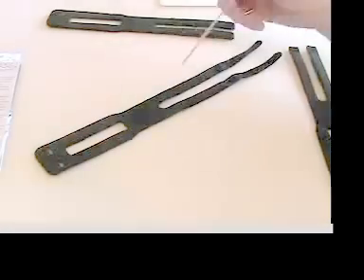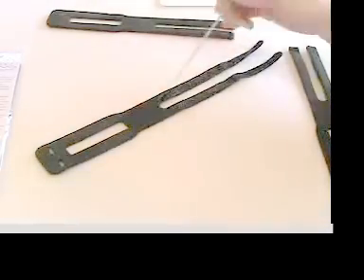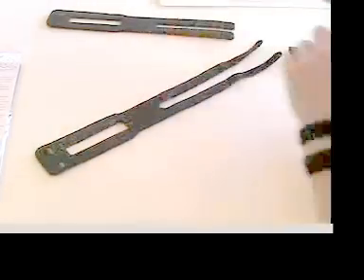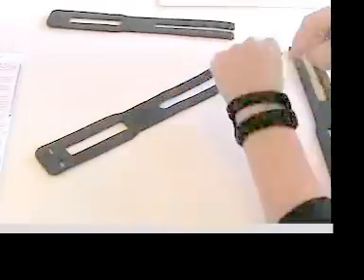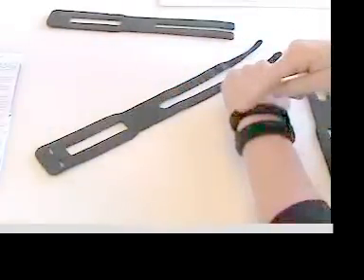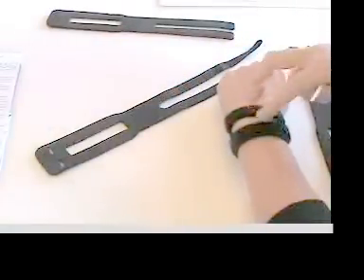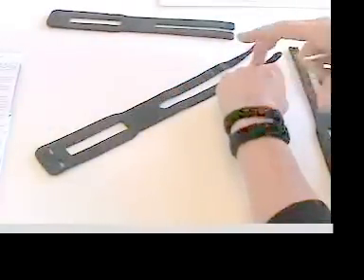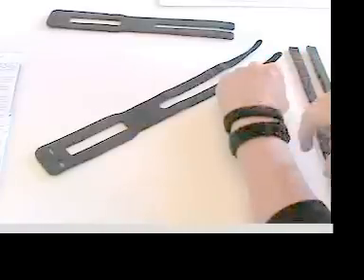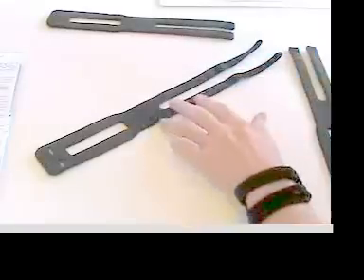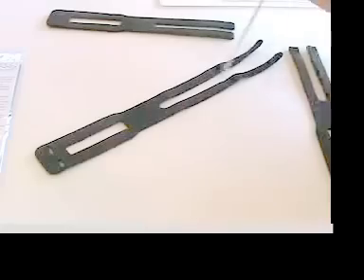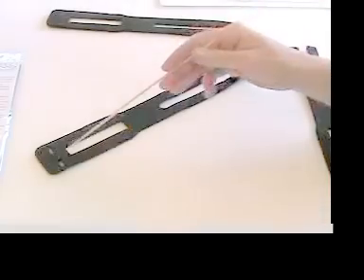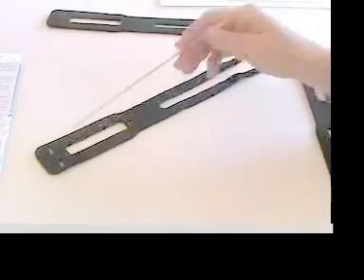These straps here go through these holes and that allows independent adjustment of this area of your wrist and this area of your wrist. That's very important because different widths of wrists require different tensions. The other thing that makes this unique is that there is no compression to the ulna styloid.